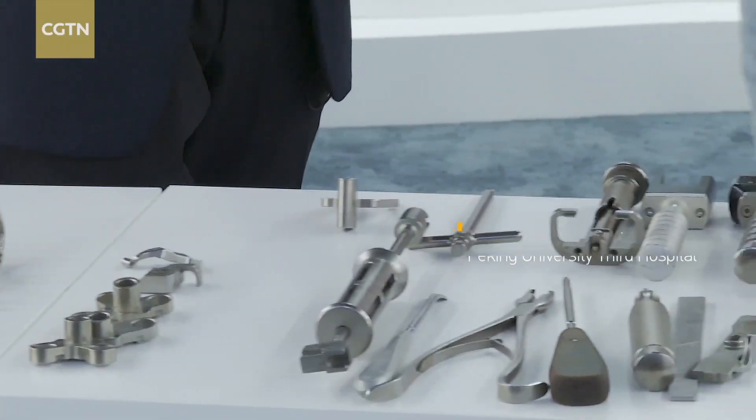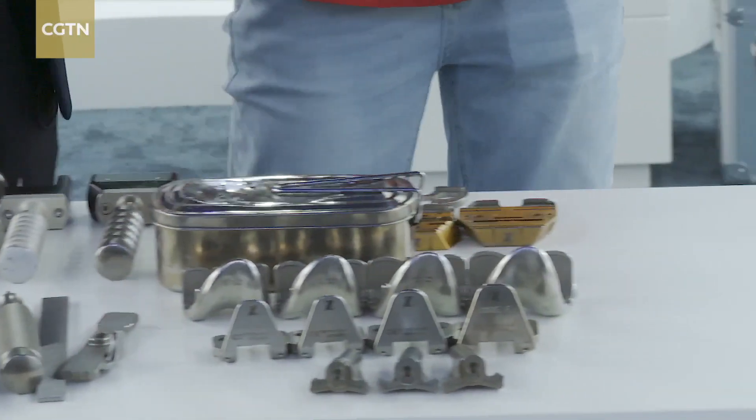For the traditional surgery, we decide on which implant to use after we cut open a patient's knee. This practice and judgment in real time may not be perfect at times and may lead to surgeries for repair later on.